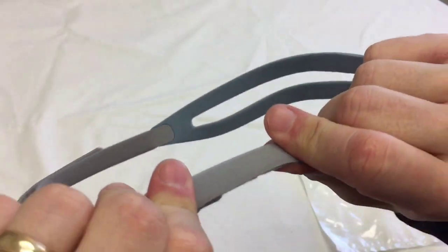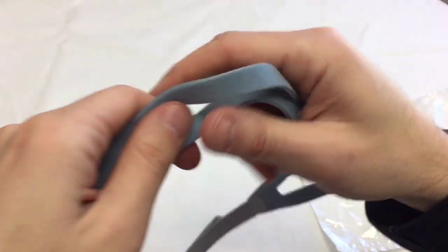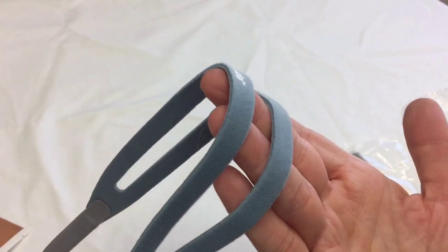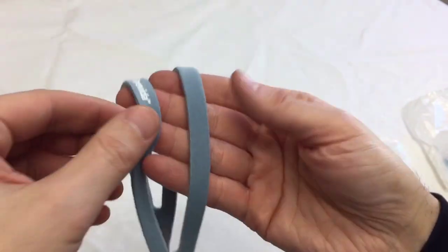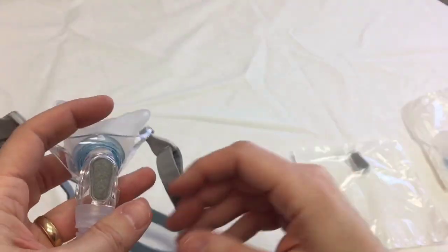So this part right here, this is unique. That is not really stretchy, but this back part, you can see, is more stretchy. So it's a fully adjustable headgear. The stretchy part in the back and the stiffer part in the front helps stabilize everything for you.